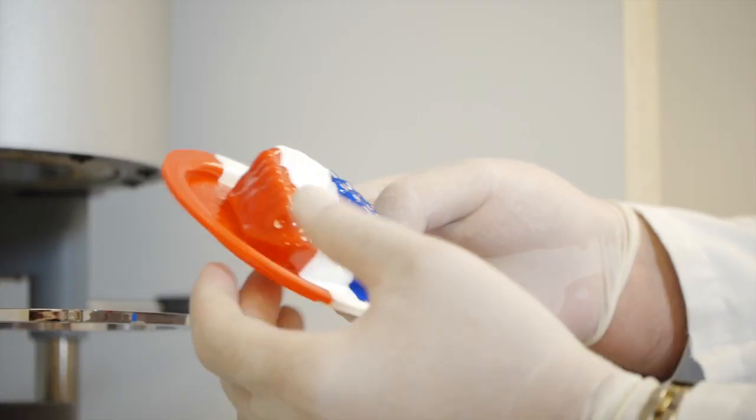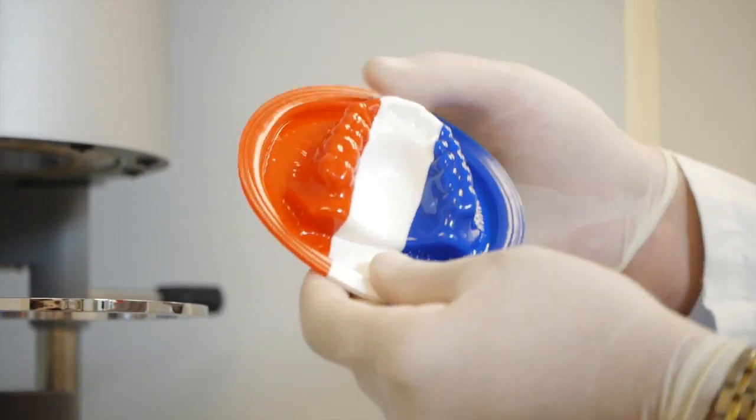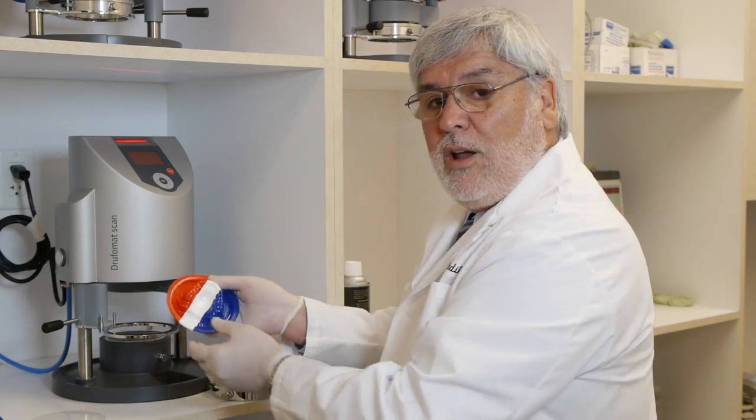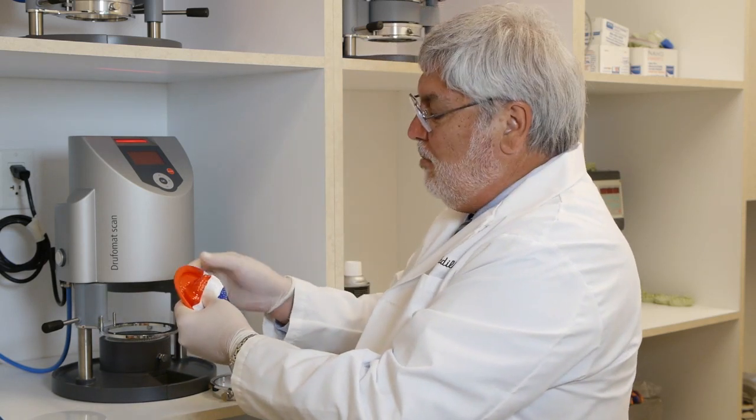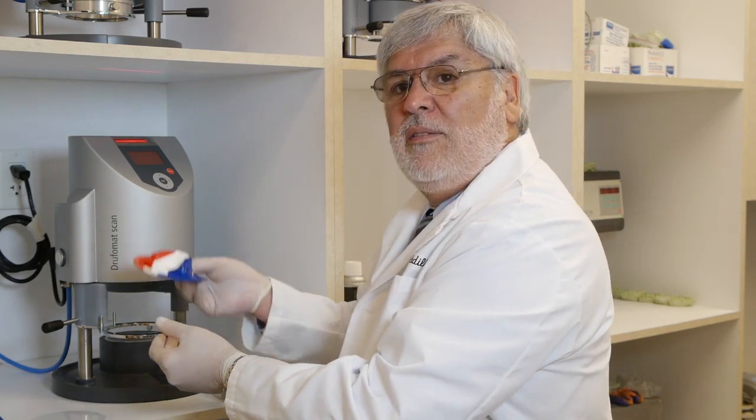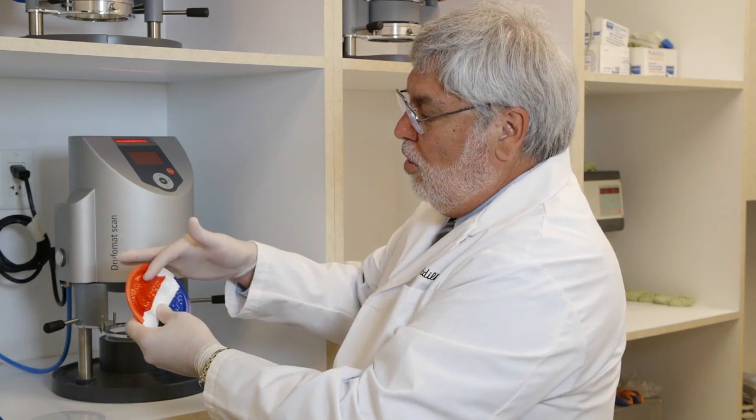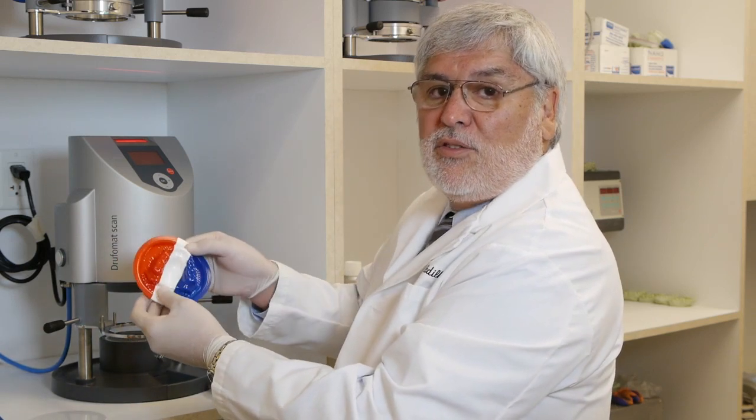Remove the ring. There is my first layer. Now what you really want to make sure here is this is cooled down to room temperature. It's pretty cool now but it wouldn't hurt to let it cool down for another four to five minutes. If you're in a hurry, place it in an ice bath for 30 seconds or so and just let it cool totally. You don't want to do anything to this while it's still warm because it will distort.